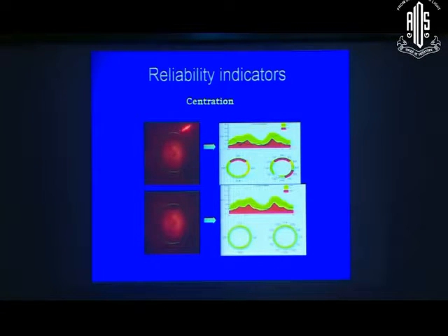We look at centration now and the RNFL thickness that you are seeing is basically around this ring. If you look at this image here, you can see that the ring is shifted upwards. And this is something which is nice and centered. Look at the values here. This is on the top corner and what you are seeing over there is multiple abnormal zones. You center it. Everything is normal. So you would have been busy treating red disease on somebody with a poorly done scan if you hadn't paid attention to the centration.